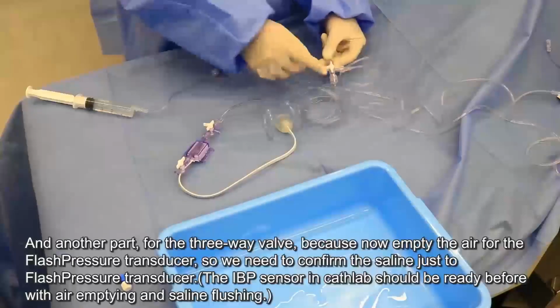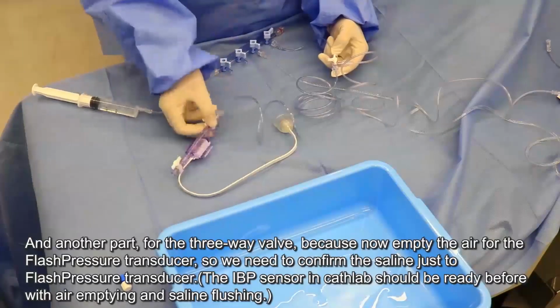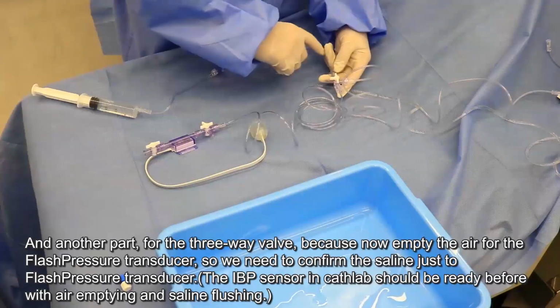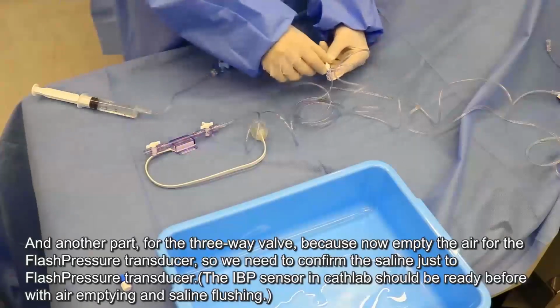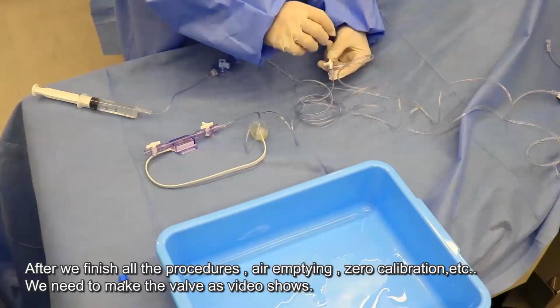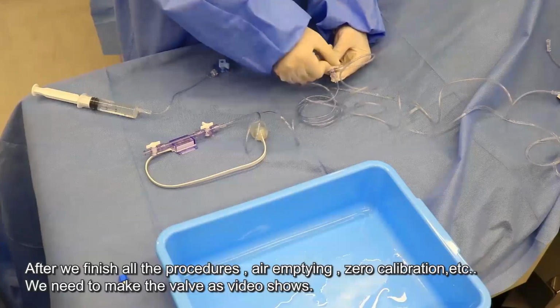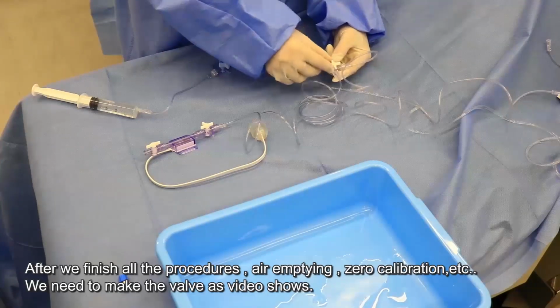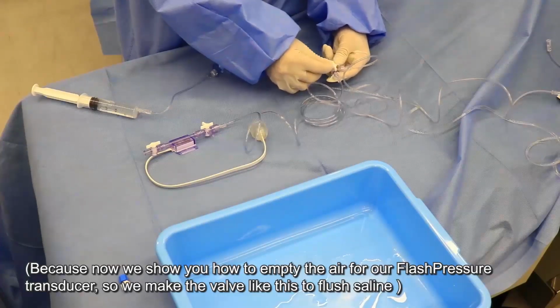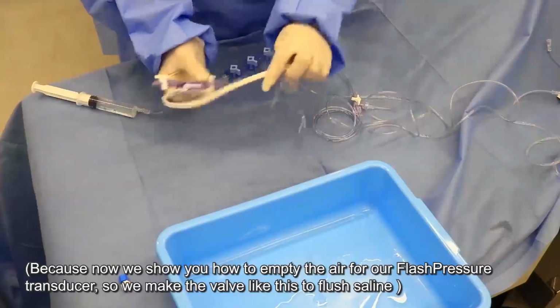And another part for the 3-way valve, because now we empty the air for the flush pressure transducer, so we need to confirm the saline gets to our transducer. After we finish all the procedure, empty air, zero calibration, we need to make the valve like this. Of course, now because we just empty air for all the transducer, so make the valve like this. Okay, now let's continue.